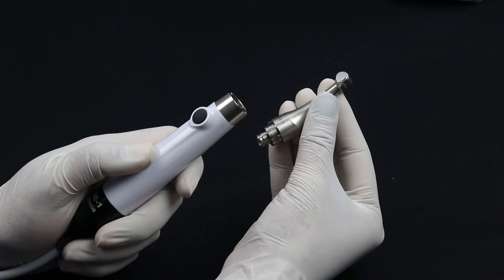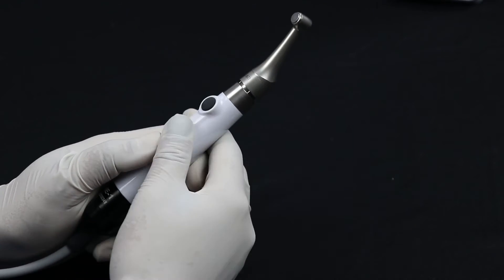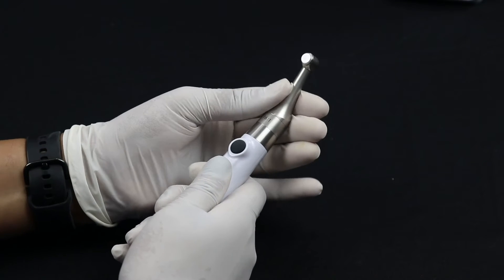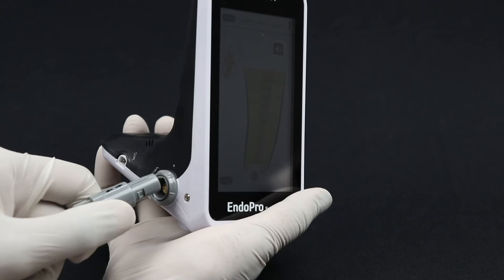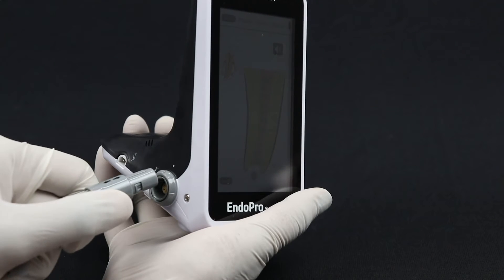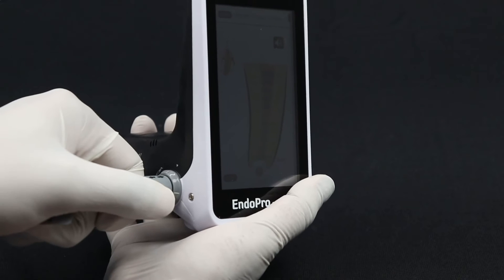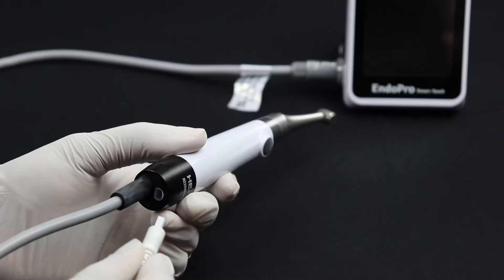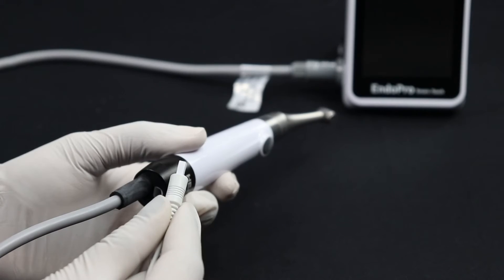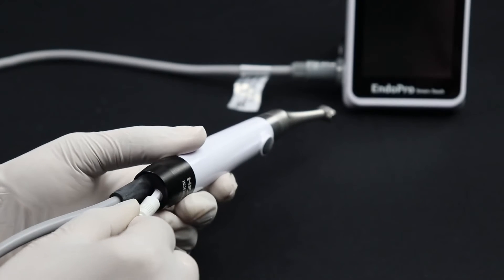Connect the contra angle with the motor handpiece. Connect the motor handpiece to the main unit. Connect the single headed measuring wire to the motor handpiece.